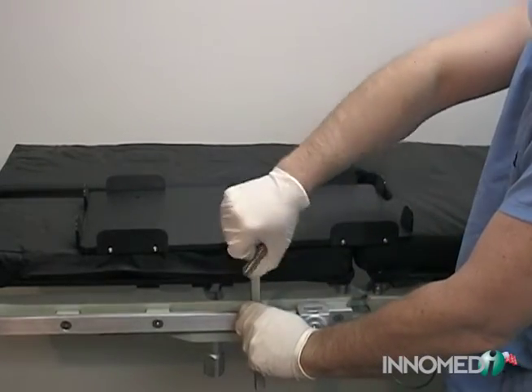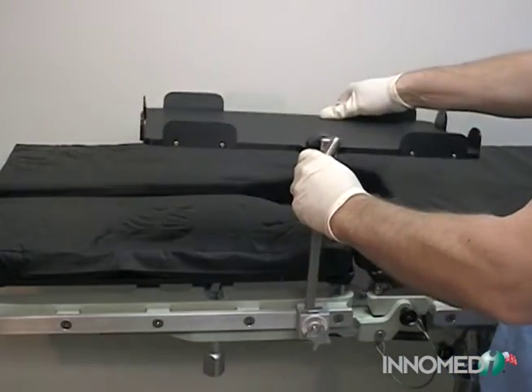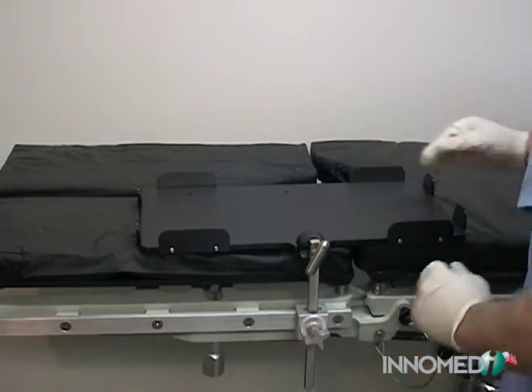To begin, the base plate is attached to the table using the upright bar. Loosen and rotate the upright bar into the vertical position, then tighten the bar in place. Insert the bar into the table clamp and secure.